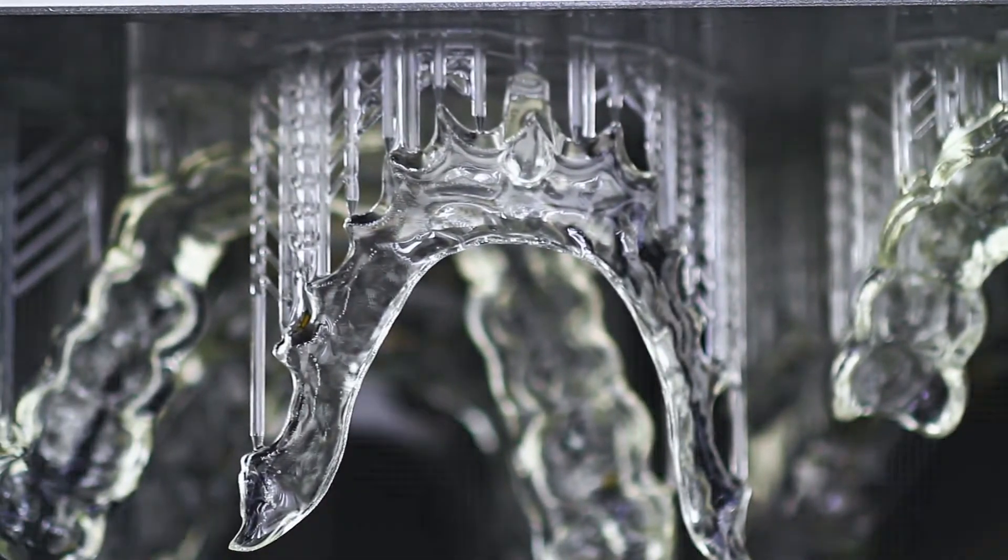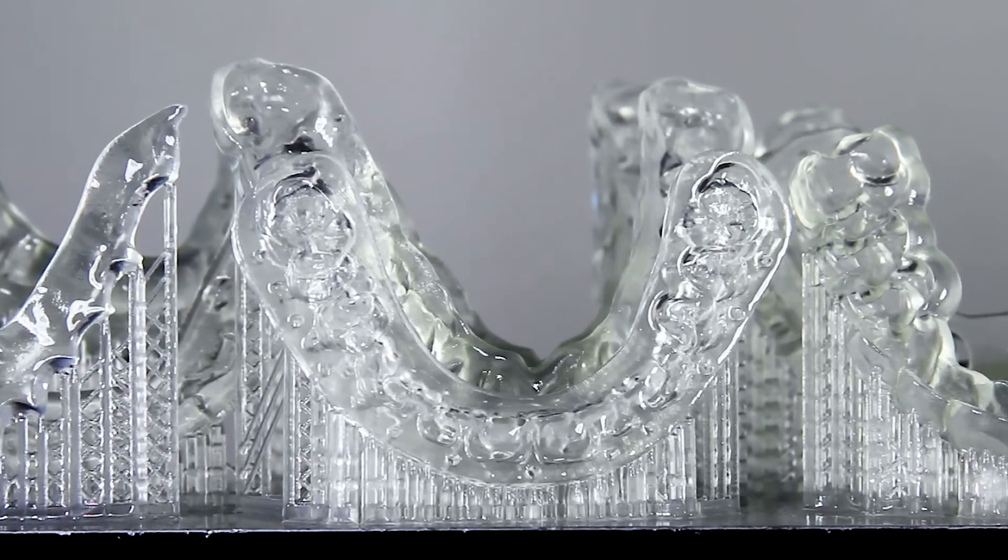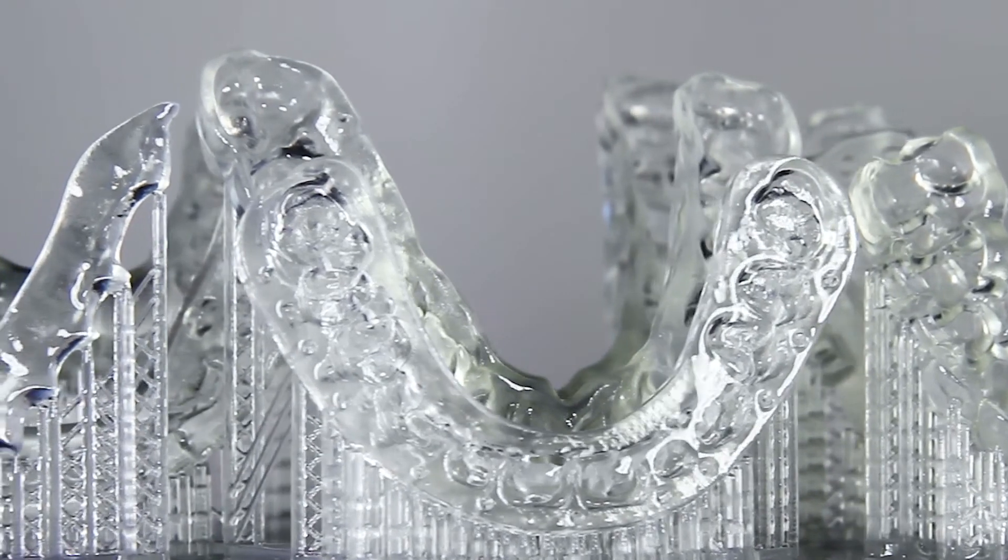This really is 21st century dentistry. eGuard from EnvisionTech, clearly the one for 21st century digital dentistry.